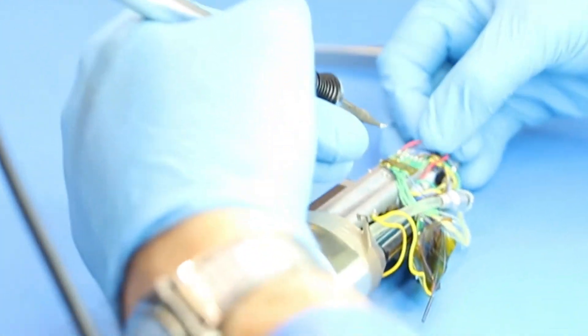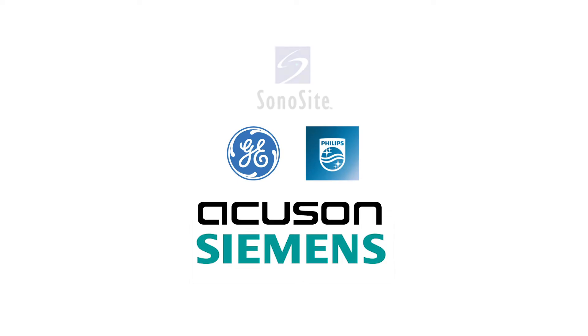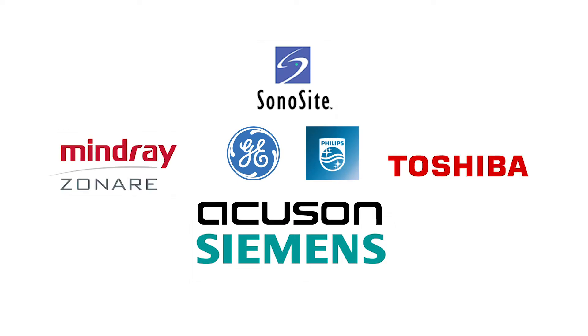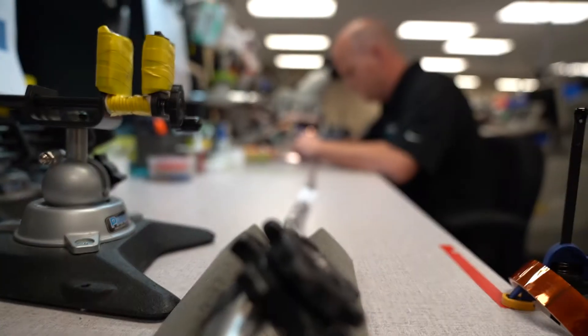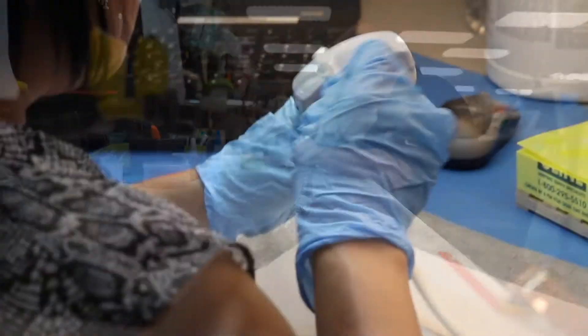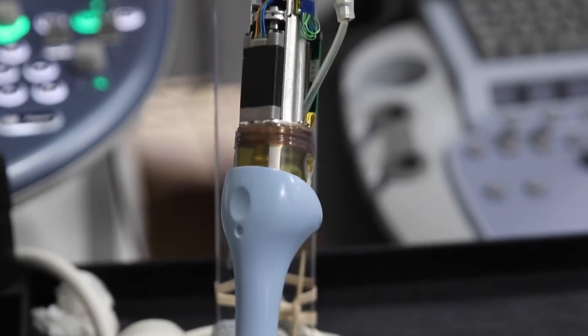We perform professional repairs on probes from the top brands including GE, Philips, Acuson, Sonosite and more. And we repair all types of transducers such as transesophageal, 2D, 3D4D and single crystal probes.